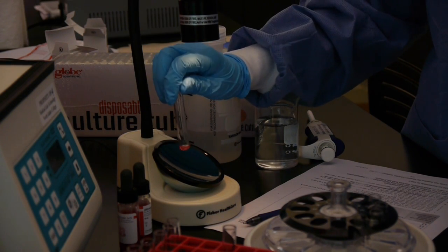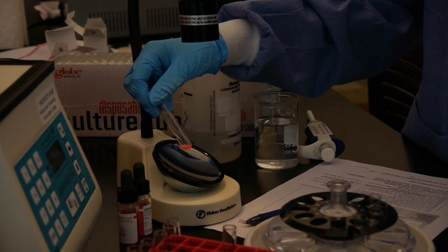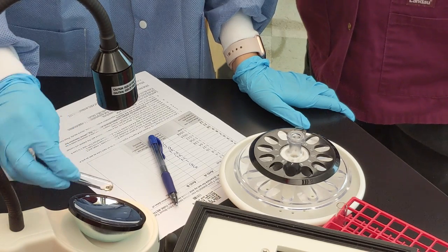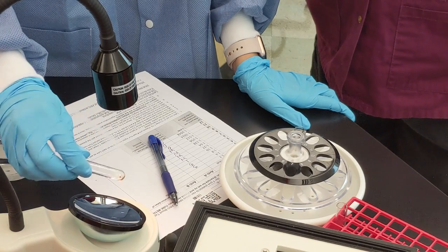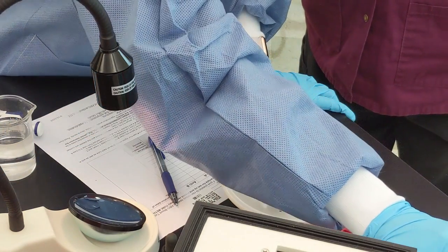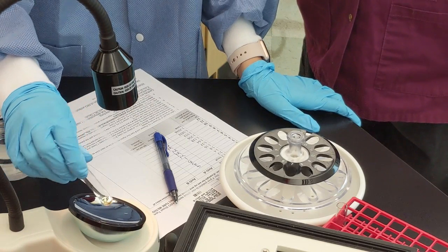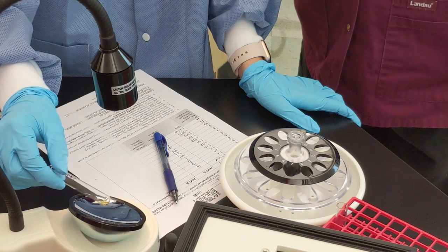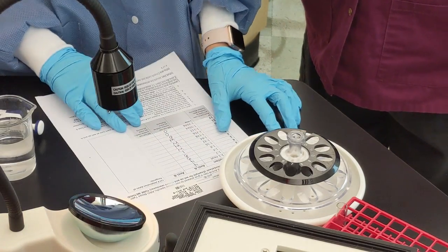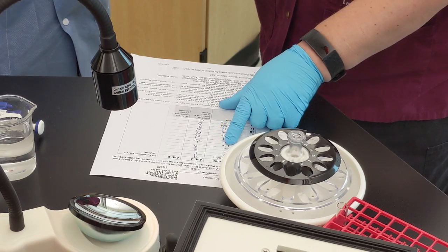As you read, you'll see a red background with small chunks that have stayed together — that's definitely a 1+. These are easy to grade, and that's why the recommendation is to read from tube 12 (lower antibody concentration) toward tube 1 (higher concentration) — the agglutination is much easier to see that way. The neat tube shows what you'd normally see with standard back-typing — a clear, strong reaction.